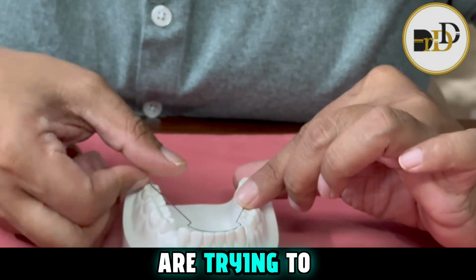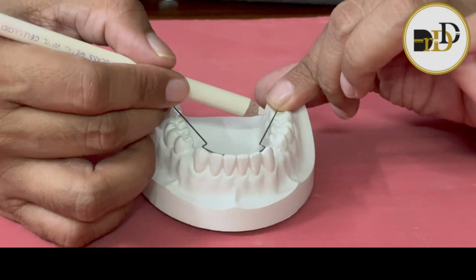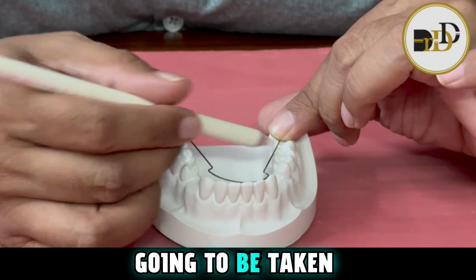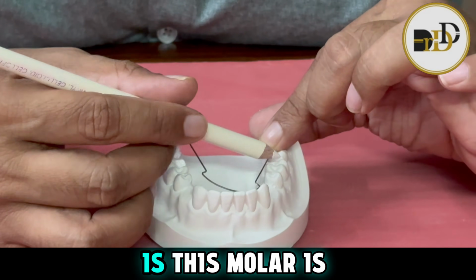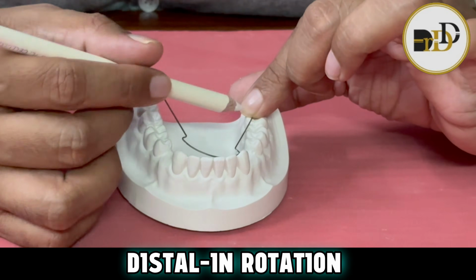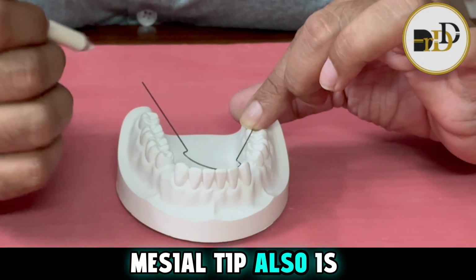But when we engage it in the patient and try to retract the anteriors by taking the support of the molars, bypassing the premolars, all the load is going to be taken by these molars. Automatically, this molar is going to get a mesial out, distal in rotation tendency. At the same time, it is also going to get a mesial tip.